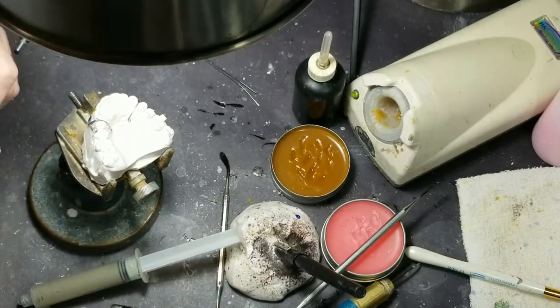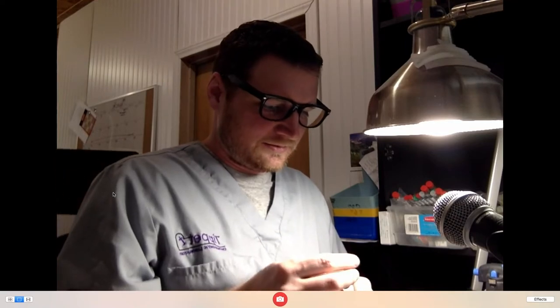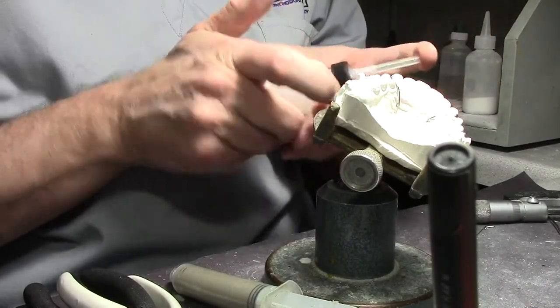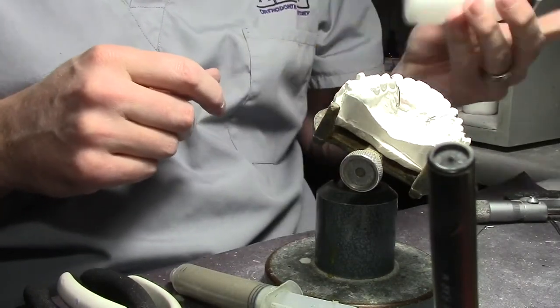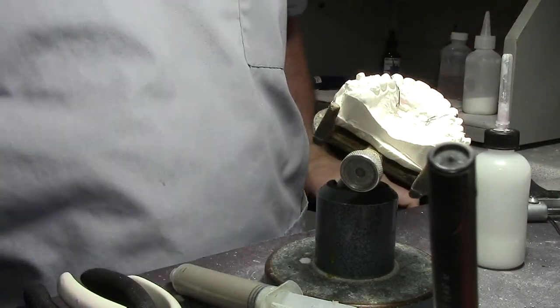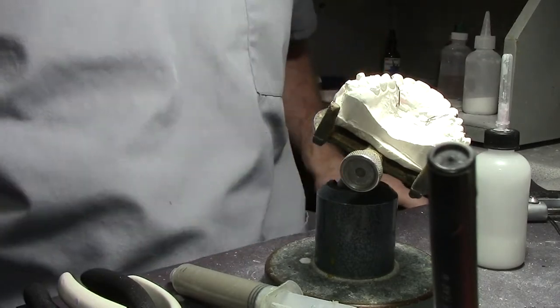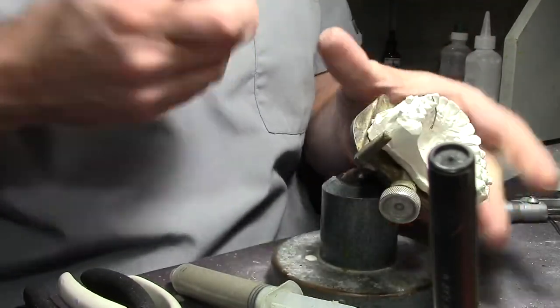No relation. We are located just north of New Orleans. I stick it in a vice grip with suction. Try one of these model holders, Deborah. Sorry for distracting — that's okay, that's why it's live, that's the best part of this — you can ask questions while I work.